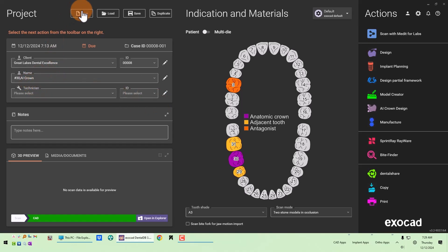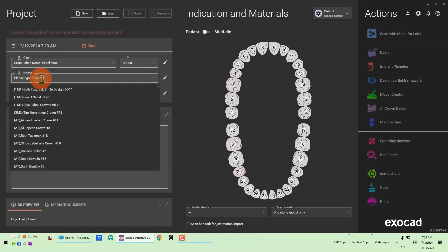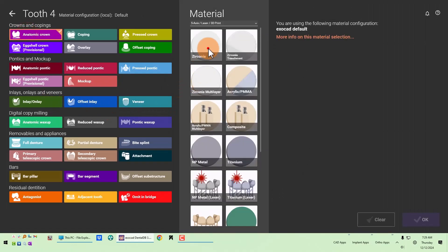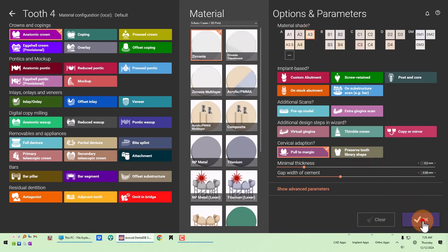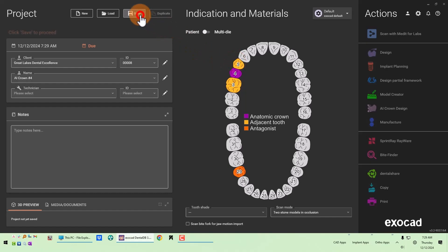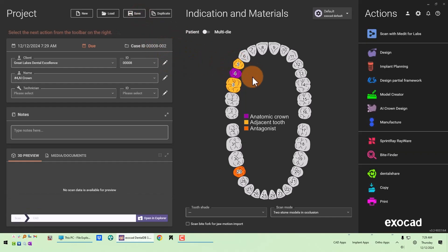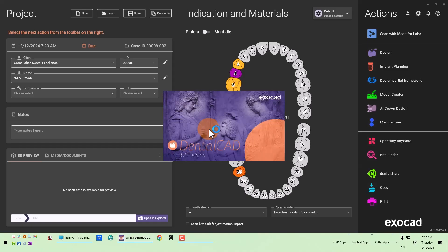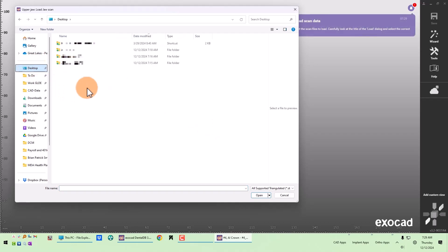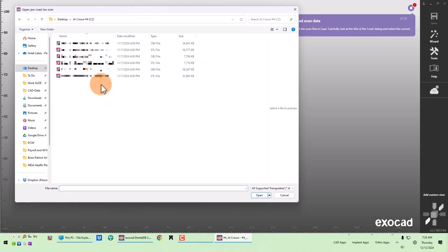I can show you another AI crown design to see how quickly this goes and how little human intervention is needed when designing these. I think it's going to make your workflow a lot smoother, a lot more efficient, and much easier to delegate to team members who won't have design responsibility.